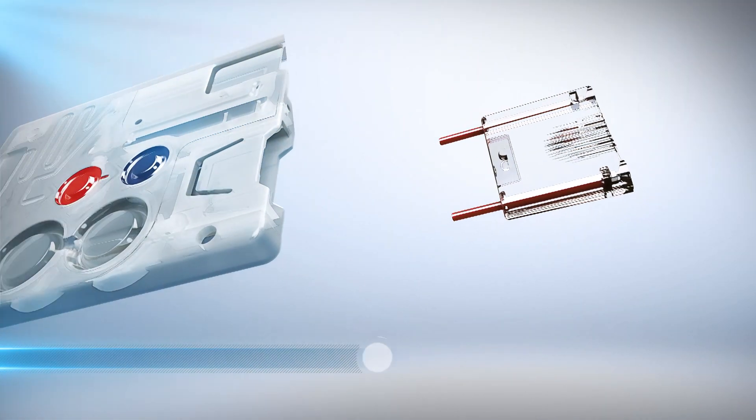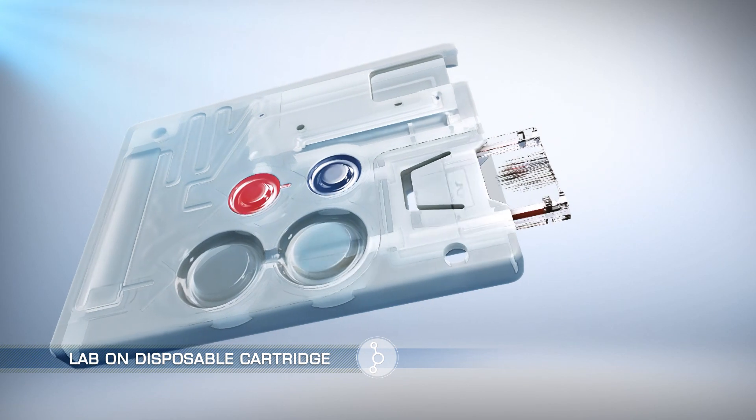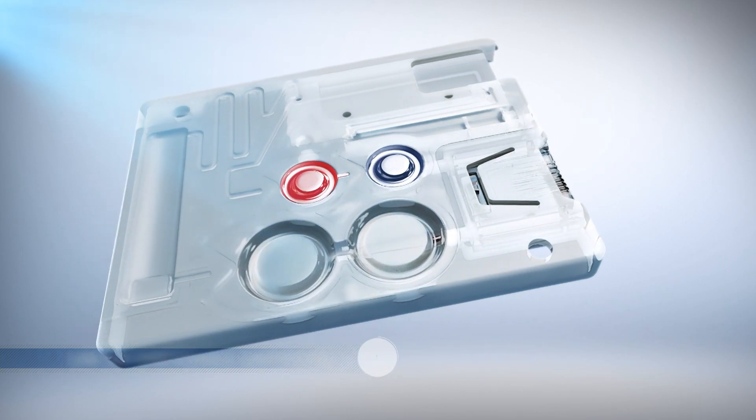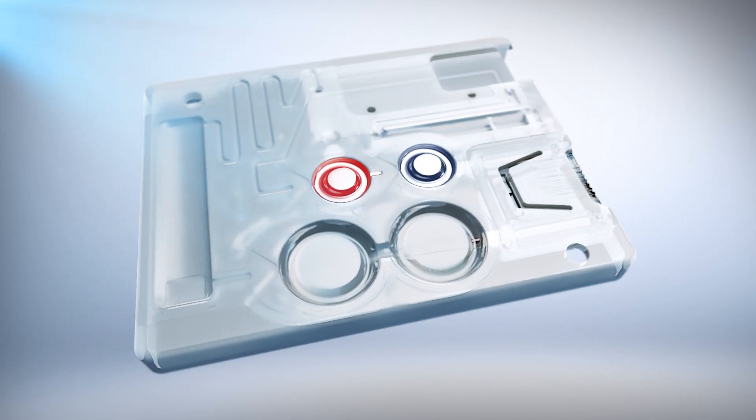The reader uses a disposable cartridge, ensuring ease of use and preventing any cross-contamination. No calibration or maintenance is required.